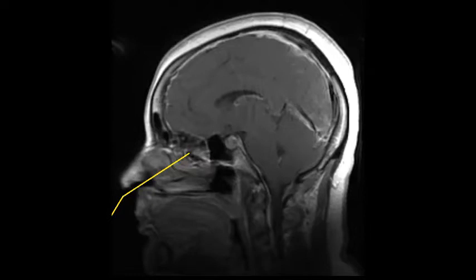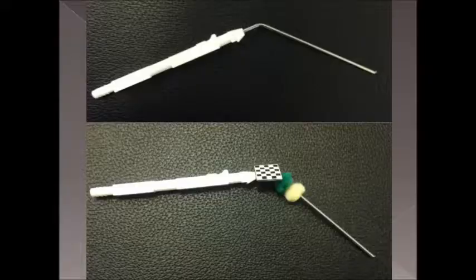The purpose of this project is to optically track a surgical tool such as an aspirator to predict where the tip of the tool is when its view is obstructed. This method of tracking would ideally be applied to intracranial neurosurgery to replace more expensive and invasive methods.